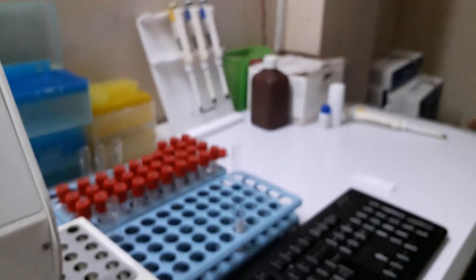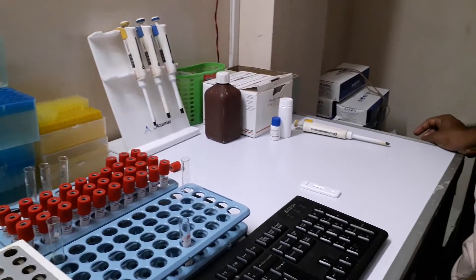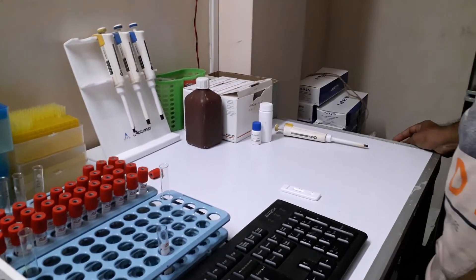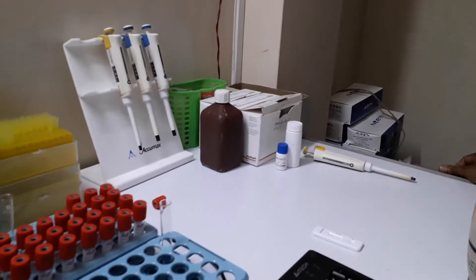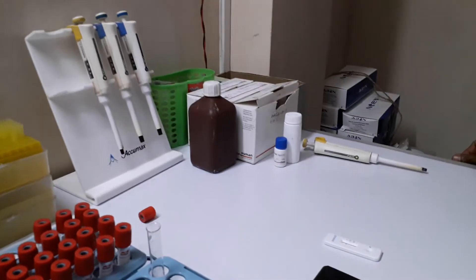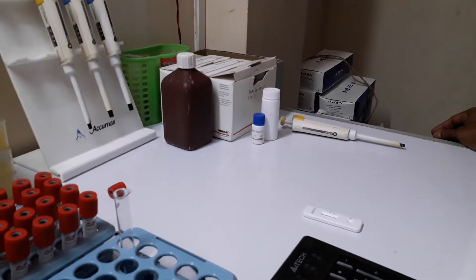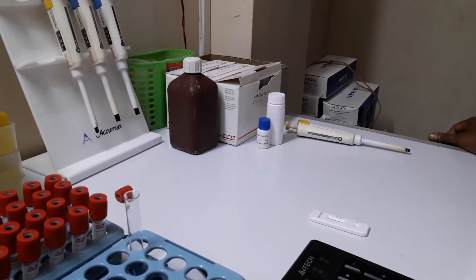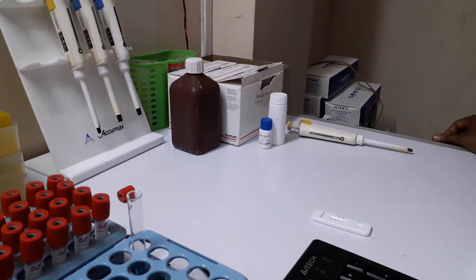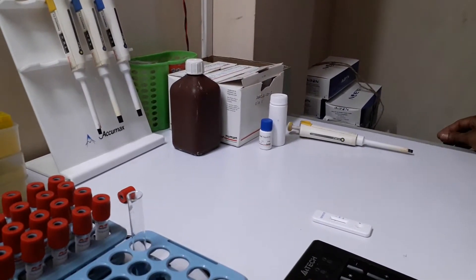Now we are detecting IgG, IgM, and Dengue. IgG means immunoglobulin G, IgM means immunoglobulin M. This is a Dengue test.